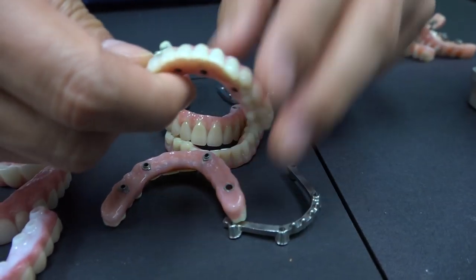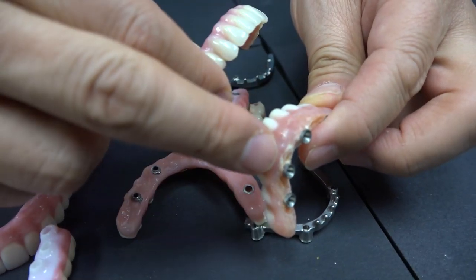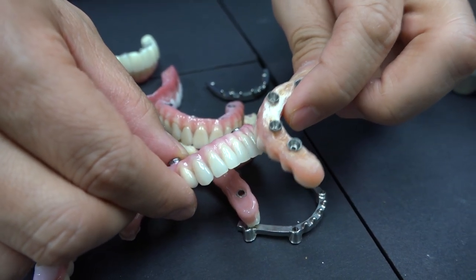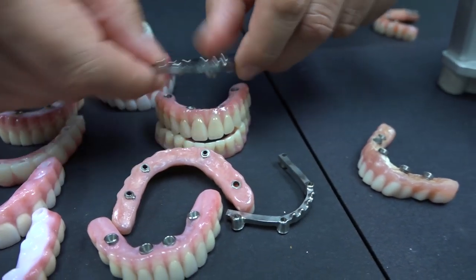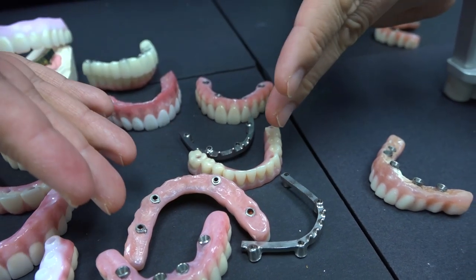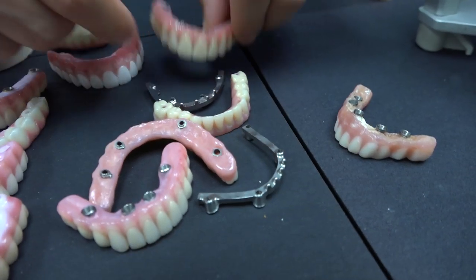This is a hybrid option. As you can see, it's beautiful, but you can tell there's some shiny here — not good. This is a hybrid option — it's lower. Depends on the patient, depends on the doctor, depends on their budgeting.